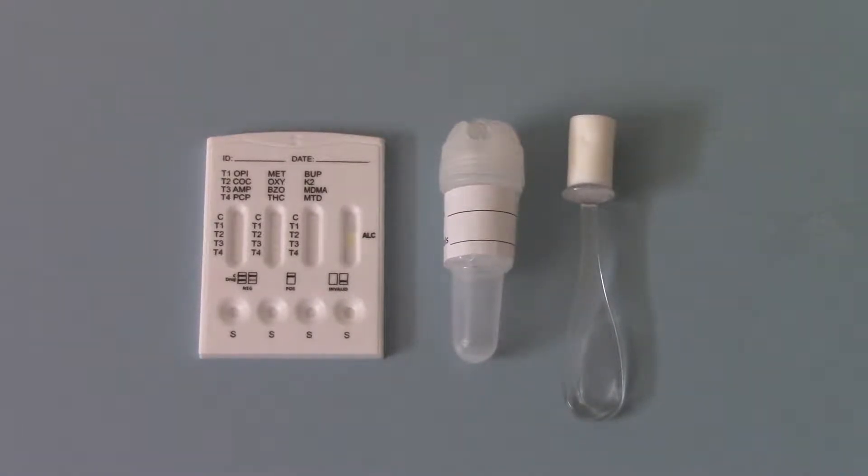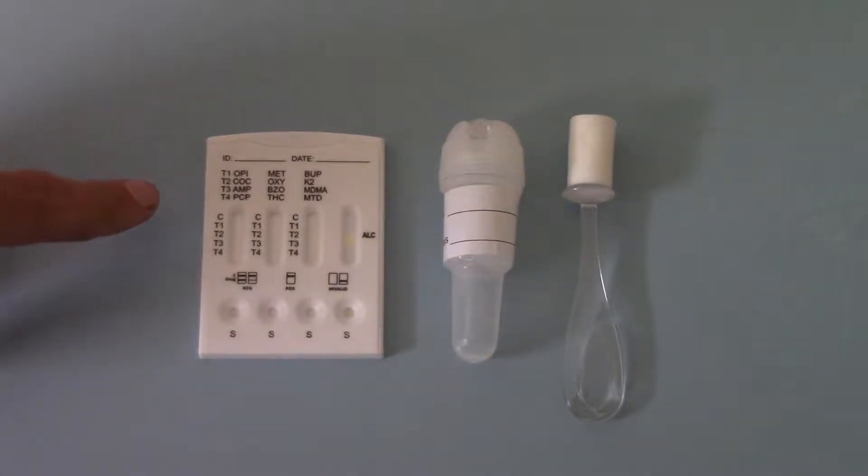Welcome back to this part two of the demonstration of the AllTest DSD-8135 13-drug saliva drug test. We've stripped all the packaging away from the components of the test that's included in these packs to show you the actual test panel, and we have that here on the left hand side of the screen.